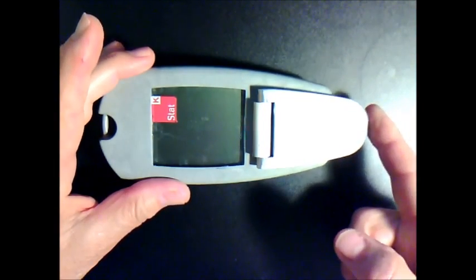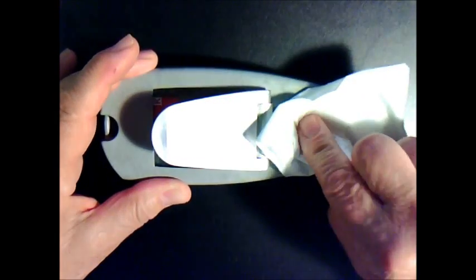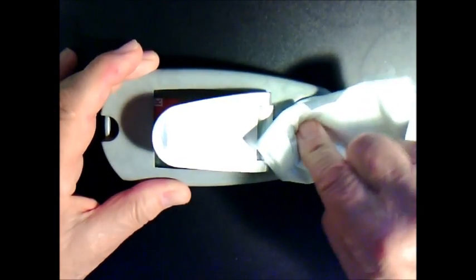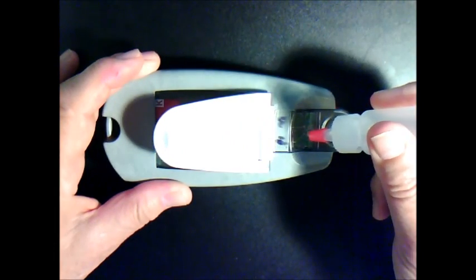Lift the cover, wipe off the excess liquid, and now you put on the blood. Just one drop of blood in the cartridge well. Close the lid and the analyzer will automatically begin to process the blood sample.